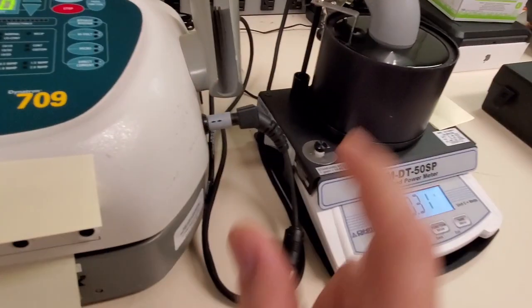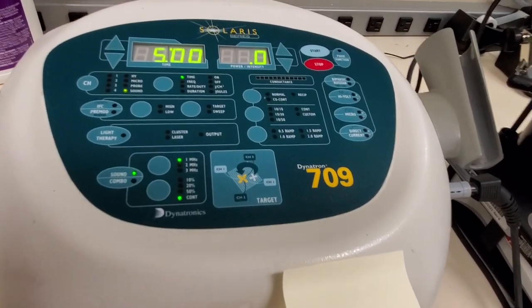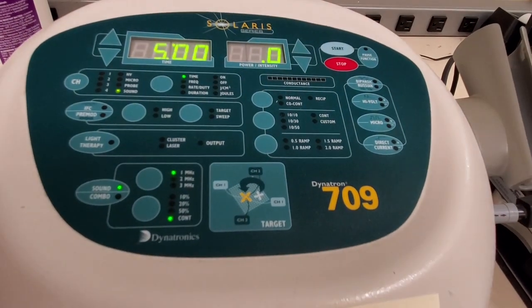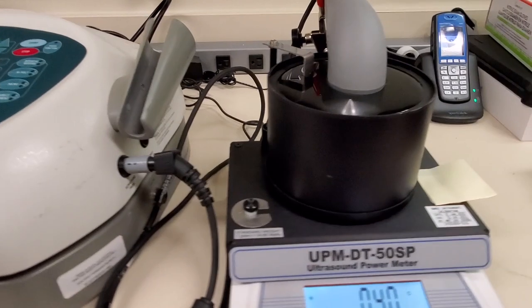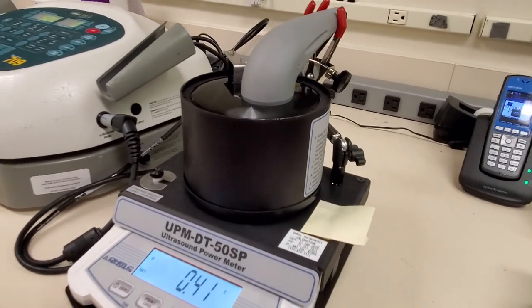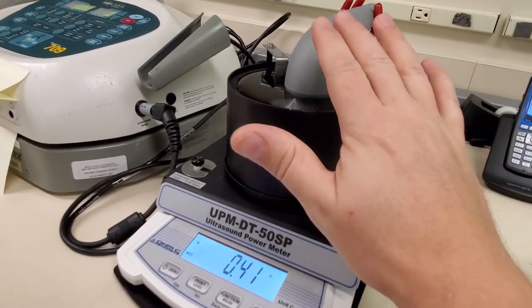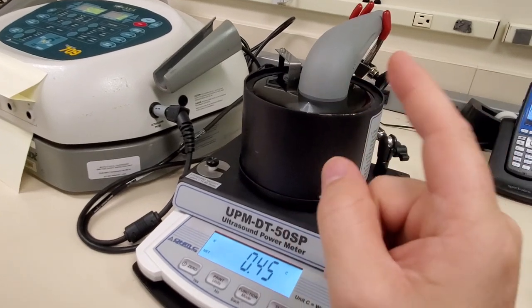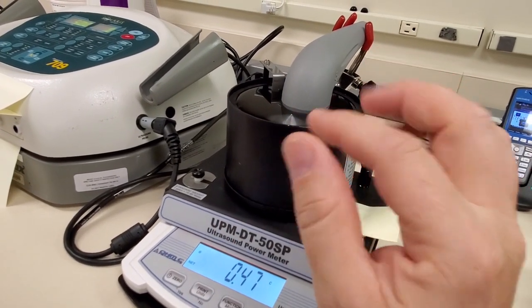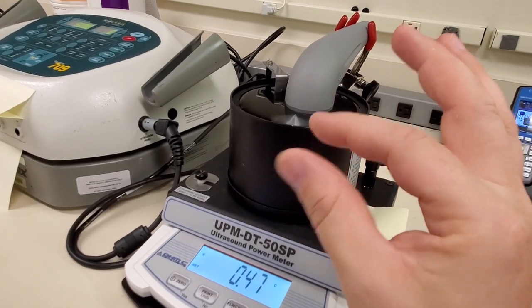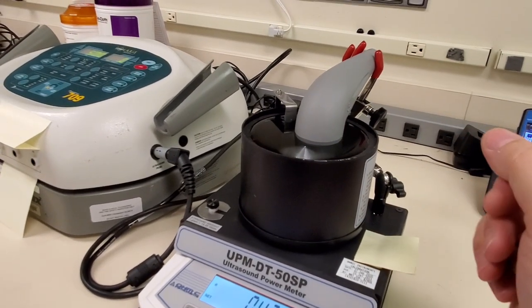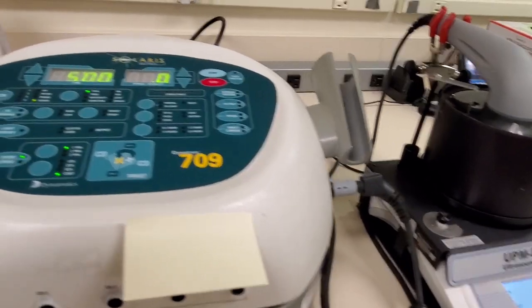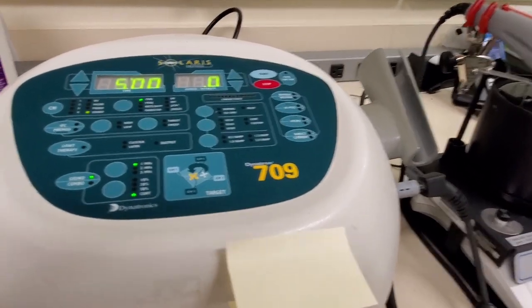Now the megahertz is the frequency of the crystal, what it's going to emit. And the lower the frequency, the deeper the penetration in the tissue. In ultrasound, they're going to use these to heat up tissue deep below the surface, and it does that by vibrating the water molecules against each other, kind of like your microwave in your kitchen which basically vibrates at a very particular frequency. The water molecules vibrate which causes friction and that causes heat. This basically works on the same principle, only you're not cooking a turkey, you're cooking your arm or leg.